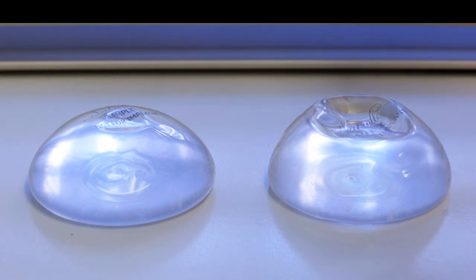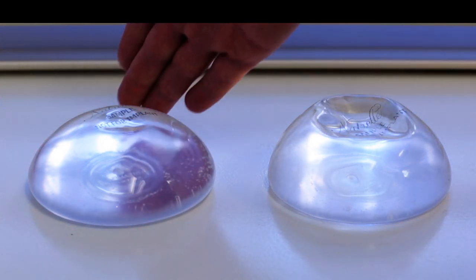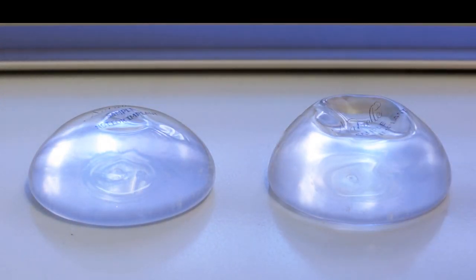Now not everyone is going to think that the firmer feel is a good thing. It's an entirely subjective concept, so really you have to come in and plan on spending a little bit of time actually feeling these two devices. Some will go for the firmer feel, some will like the softer feel a little better.